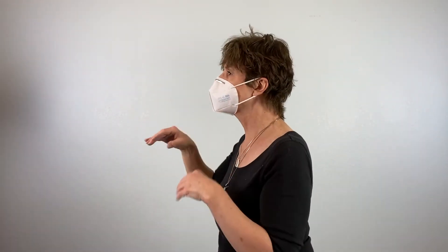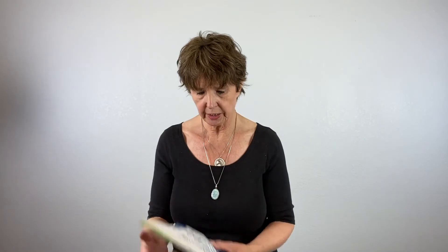This fits really nicely under my chin. One thing that's nice about this mask is it has the extra room in the front, so it's not pressed against my lips — I can breathe pretty nicely in this. These come in a bag of 10. The FFP2 means that is the European certification for filtering out 95% of particulates. You've got your FDA certification over here and the European certification here.